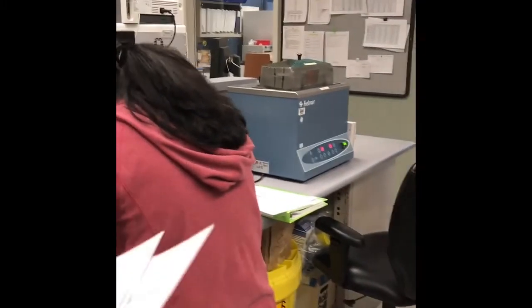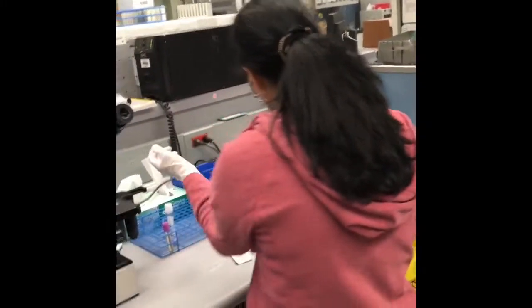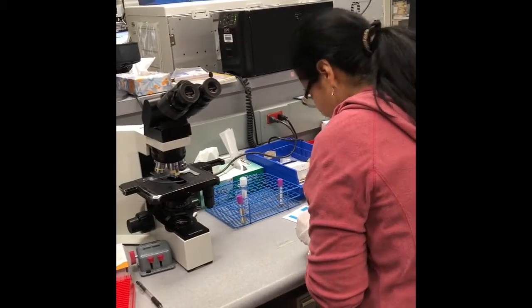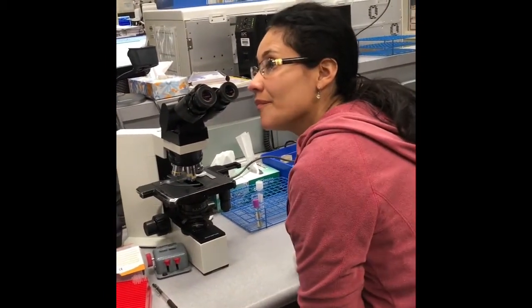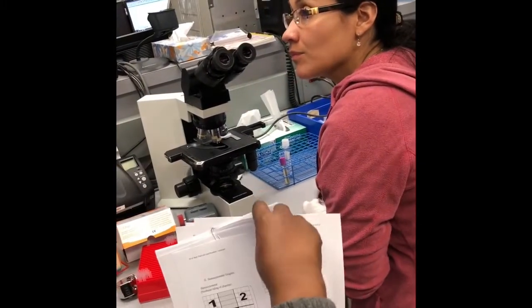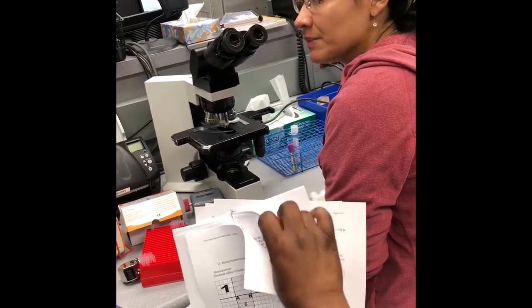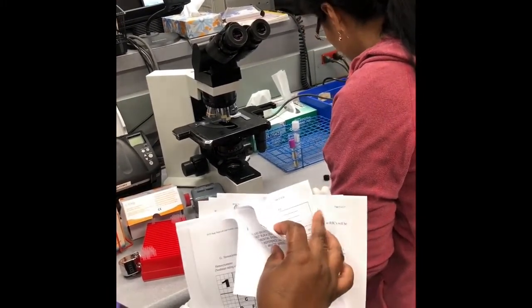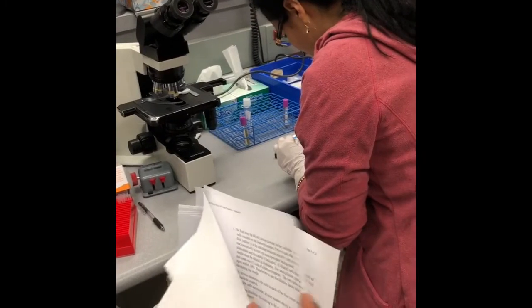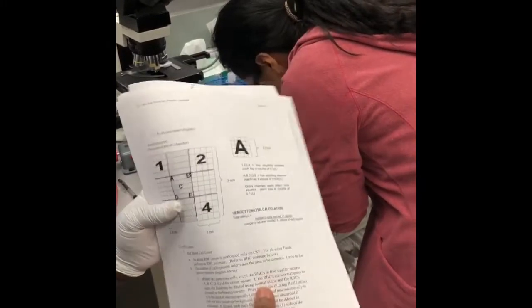Did you get the little things for your Cytospin? We have Stage 2. Y'all have those for your Cytospin? Are you able to put a calculation where everybody can see? Yeah, we can do the calculation. Maybe we can create a dummy and play around. Stage 2 isn't on here? It must be over there.